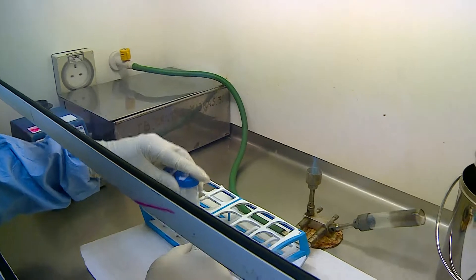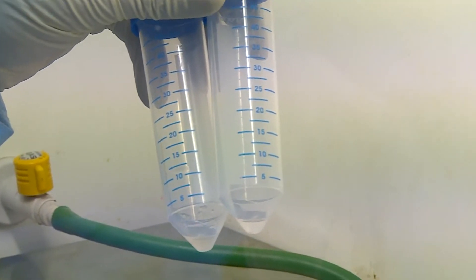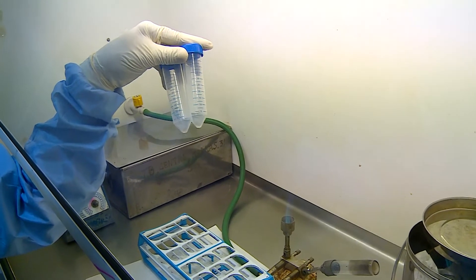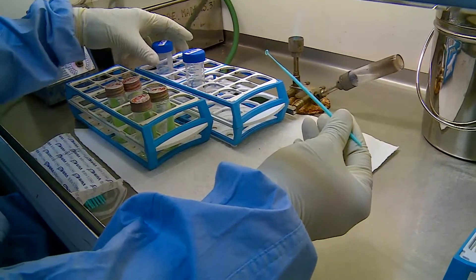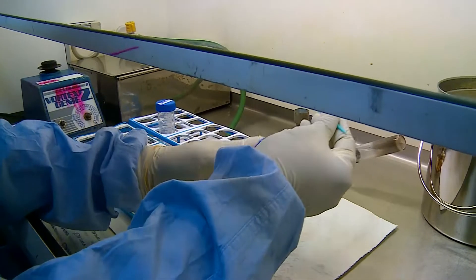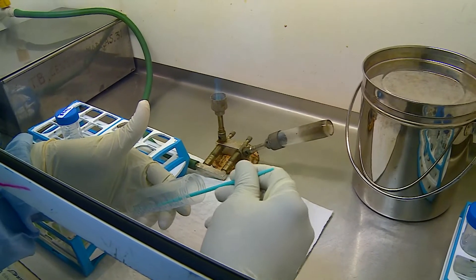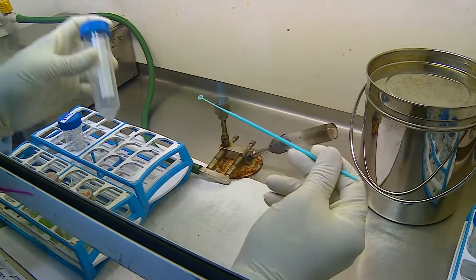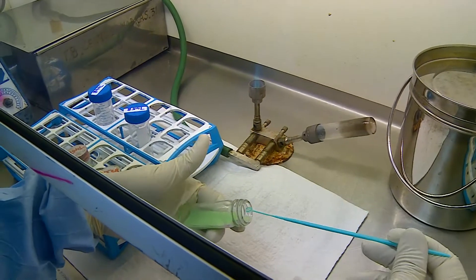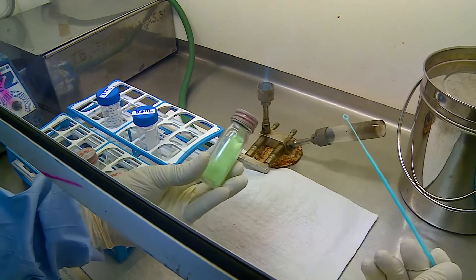We have 2 processed sputum deposits here which we are now going to inoculate on LJ medium. We can do the inoculation using the 5 mm twisted nichrome wire loop or using a disposable loop. A full drop is taken from the deposit using the loop, which is about 10 microlitres. It is spread onto the top surface of the LJ medium, spread nicely, taking care to see that the inoculum does not run down to the water of condensation.